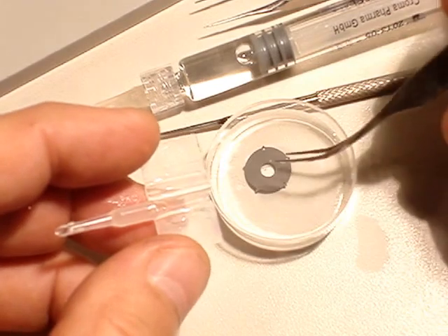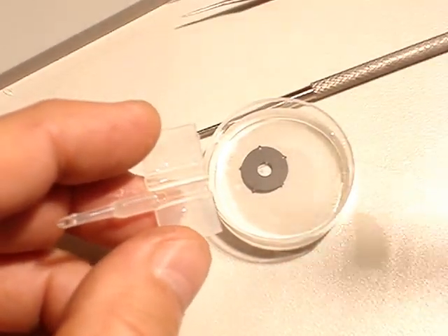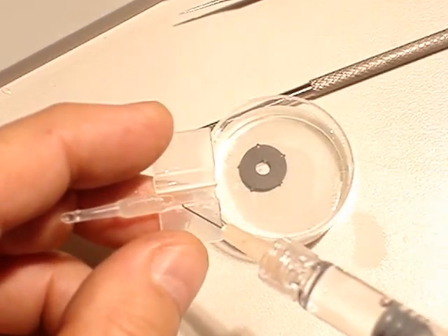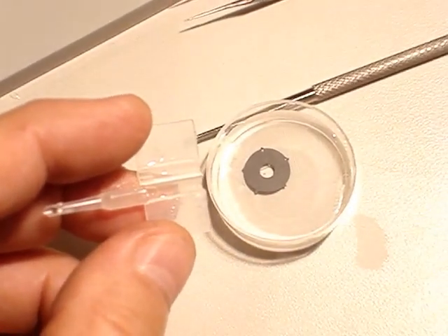Using the cassette, put some viscoelastic solution on its borders.